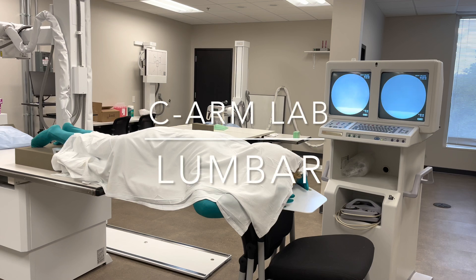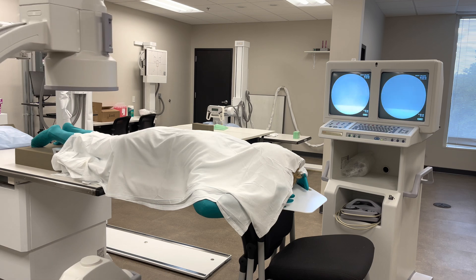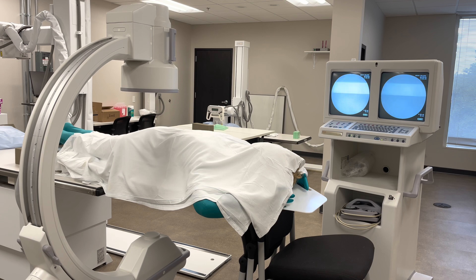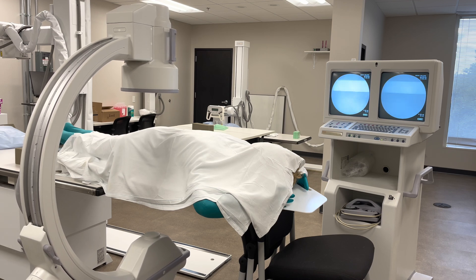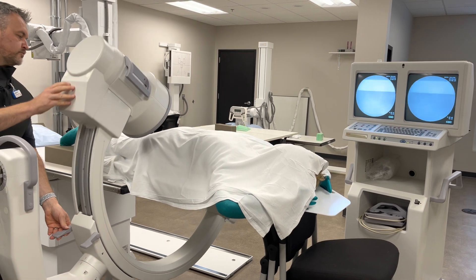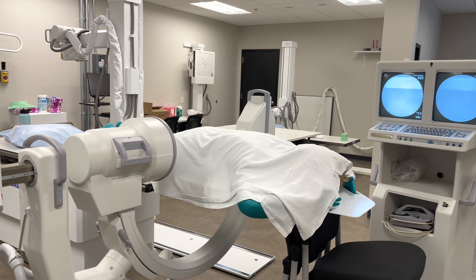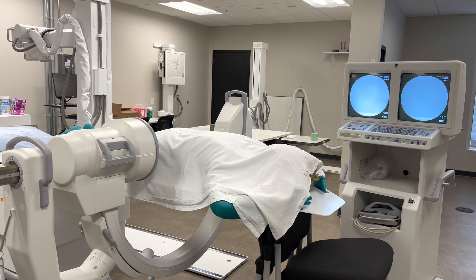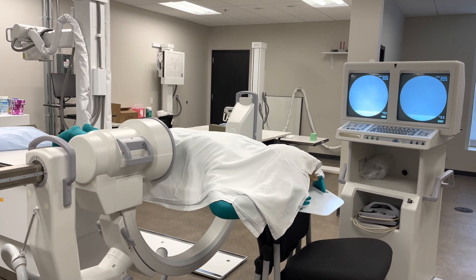For the lumbar portion of the sim, you're going to come into the field approximately center midline, but you will then bring the C-arm under for a lateral projection. What we want to demonstrate is S1L5 towards the bottom of our image. Try to maximize your field of view, so minimize your OID.